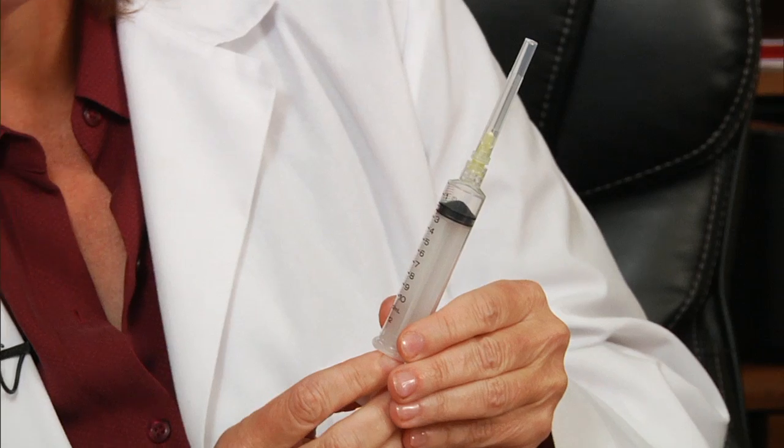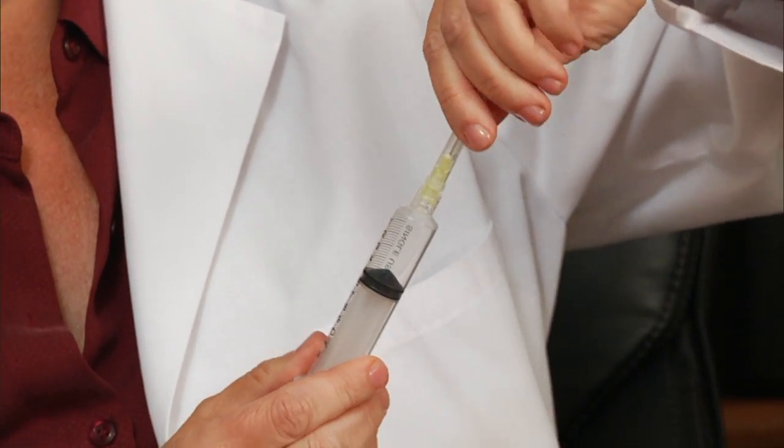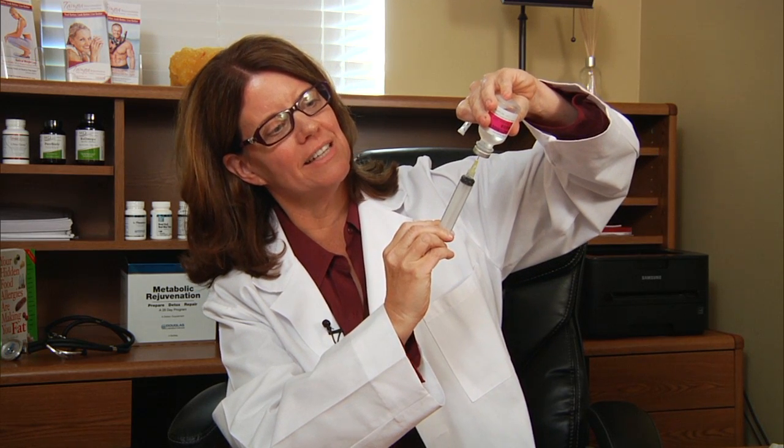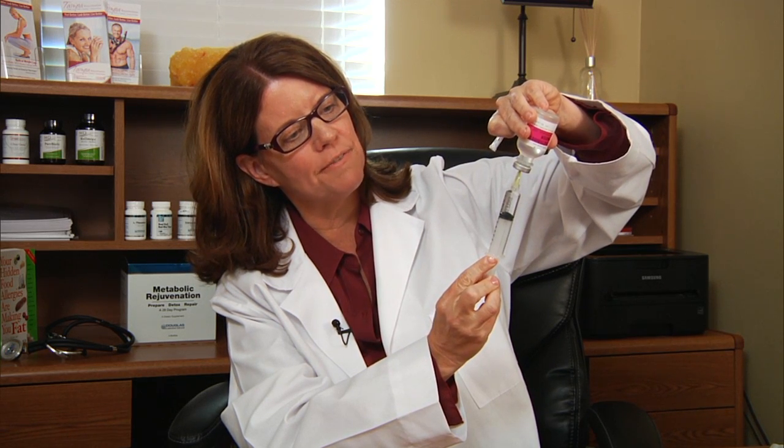You can see that the syringe is labeled with different numbers. You need to look at the prescription label and see what it specifies — often it will specify three and a half mLs or five mLs. What you want to do is withdraw the plunger on the syringe to that mark and make sure that the black marker is at the number. Now remove the cover of the needle, insert the needle through the plastic cover, and inject the air — often the syringe plunger starts to go down. You want to withdraw to that five mark.